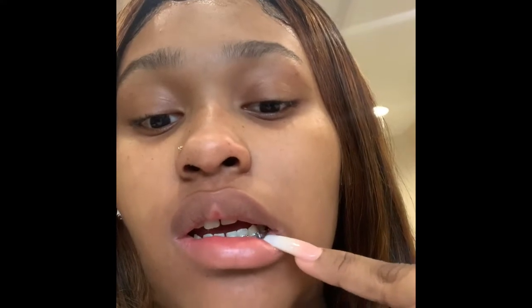I told her about this one bracket right here — I don't know if I'm wrong with it. I always have to show you guys a better view but I can't, so this is just going to be the best I can do.